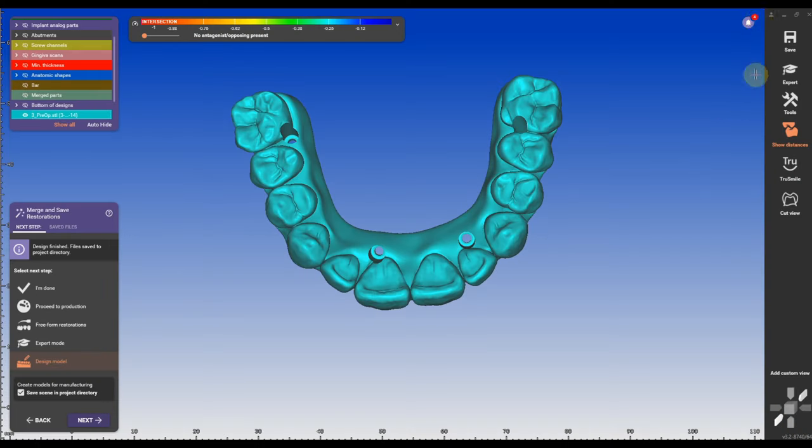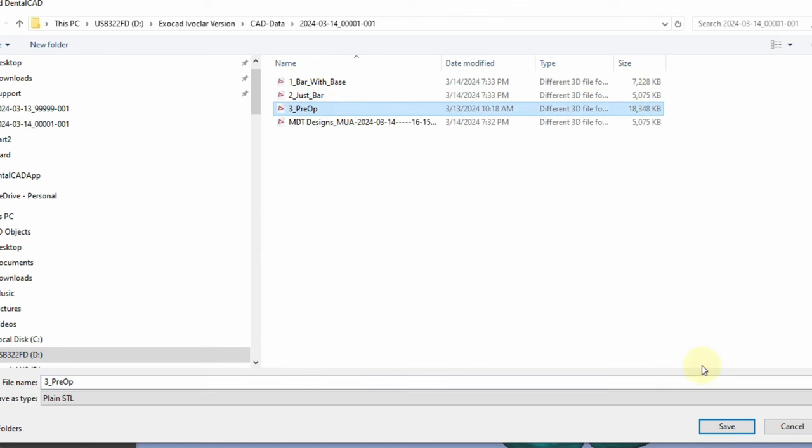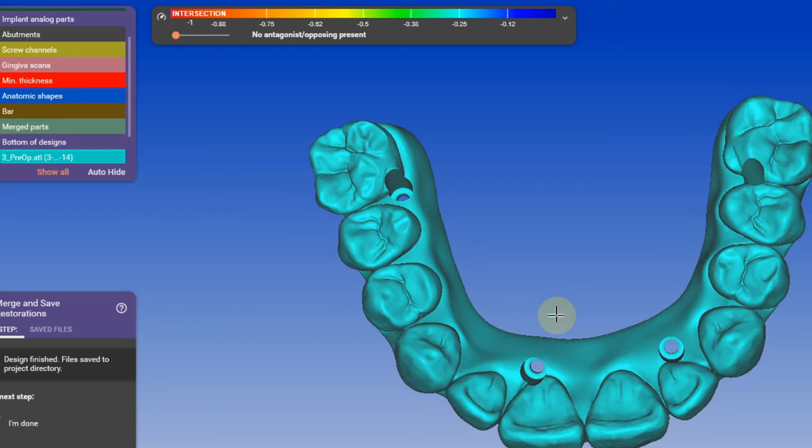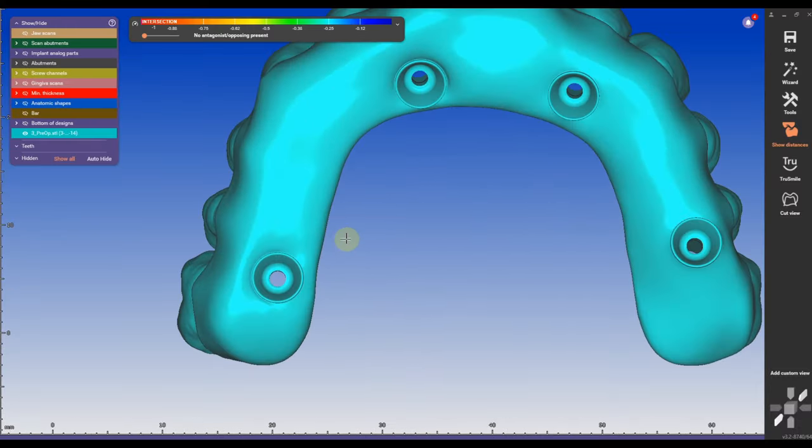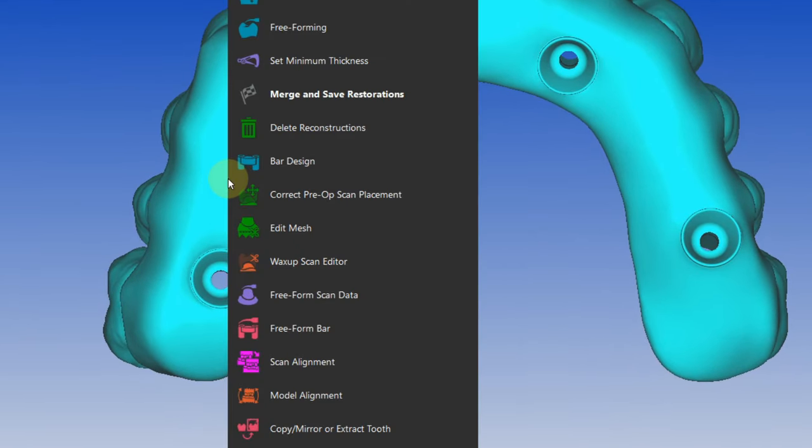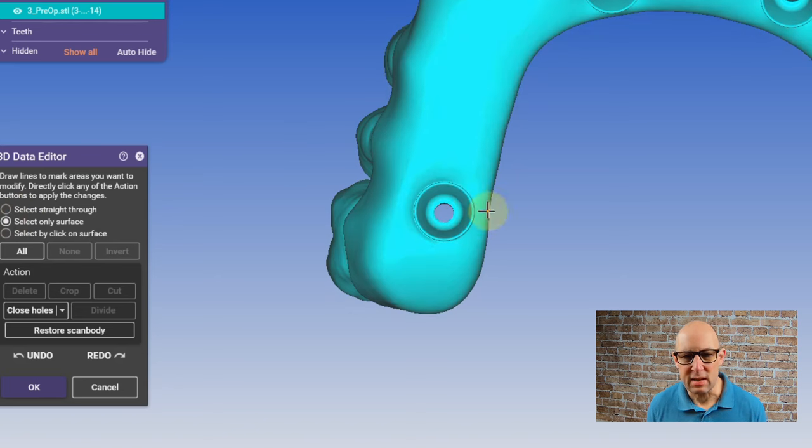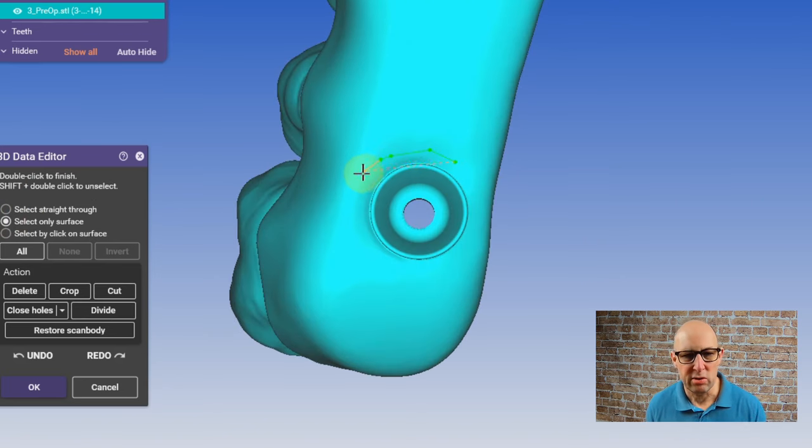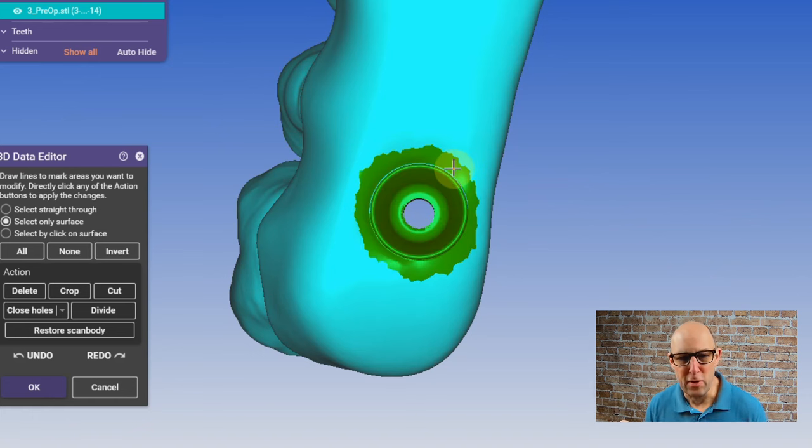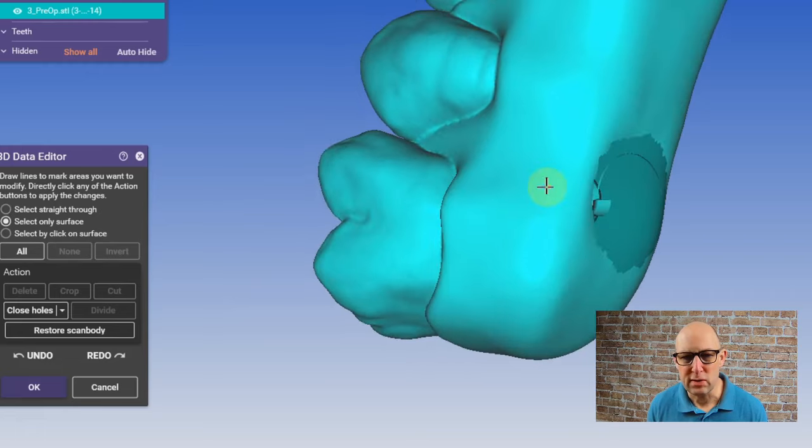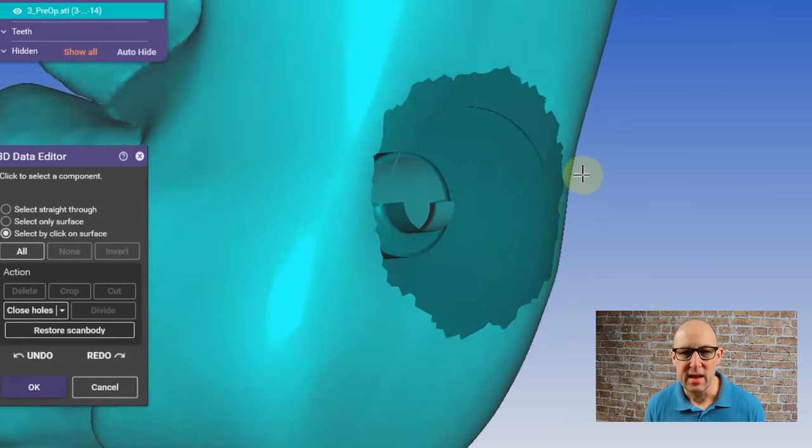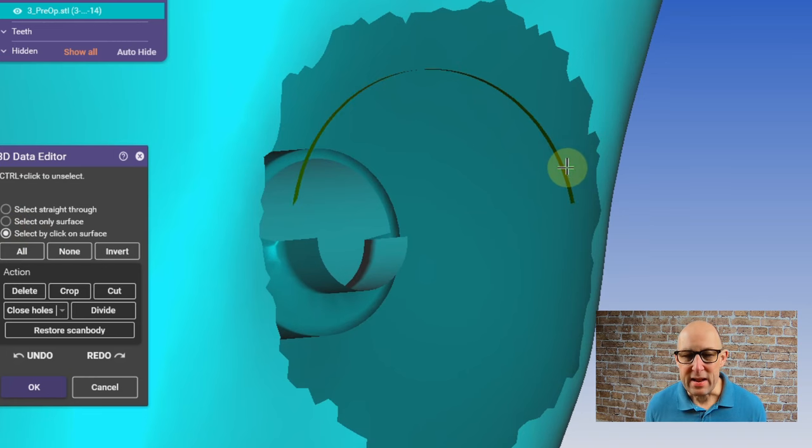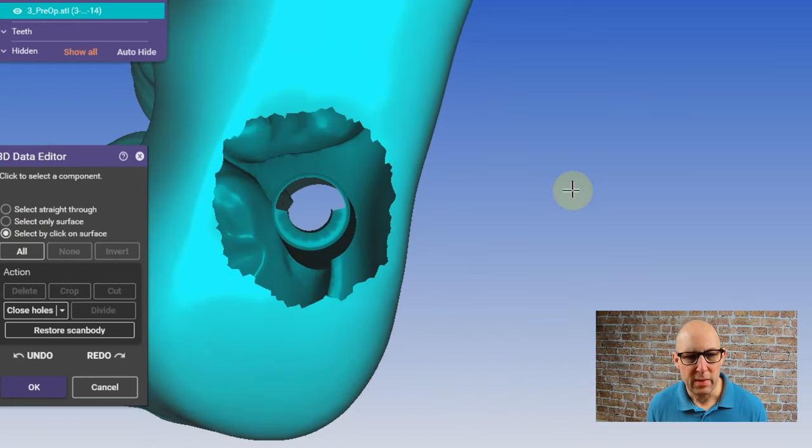For good reasons, maybe I shifted anything here. I'm going to export the pre-op again, I'm going to click yes, same coordinate system. And then I'm going to do something special to the pre-op. When we copy the pre-op later on we don't want to have the interfaces of the multi-unit. So what I'm going to do is select only the surface, circle carefully around the multi-unit interface, delete it. And inside you can see there are some floaters in there so select to surface only and zoom in and highlight only this floater. Then go to select straight through and circle the entire hole and click on close holes.